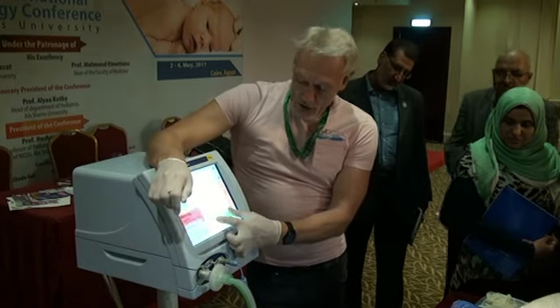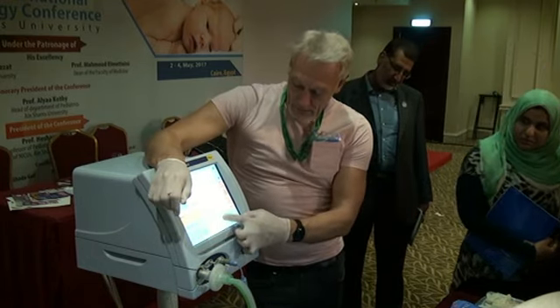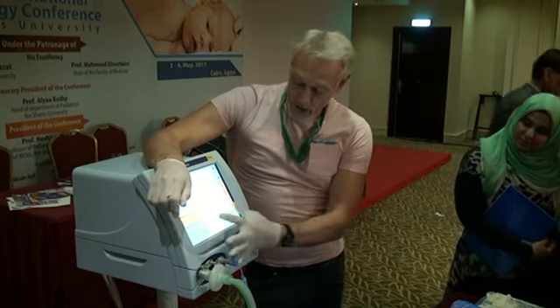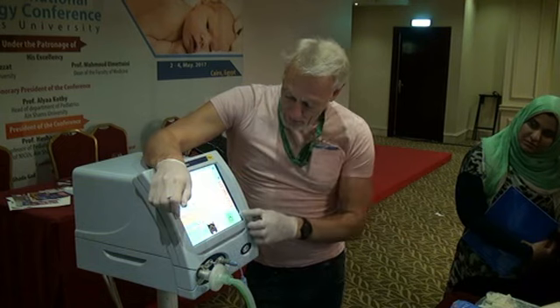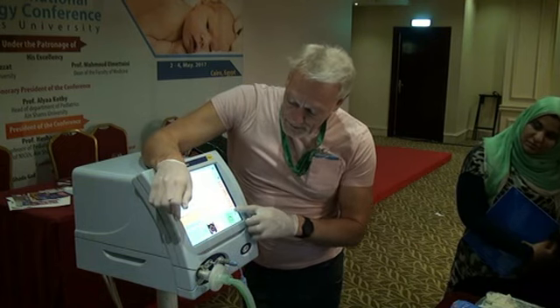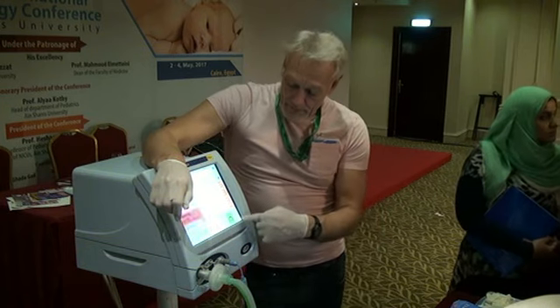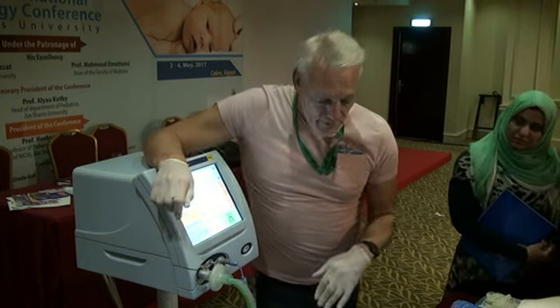So now look at the effort, because I've got a very low PEEP, to try and get to open. I want that to be nice and thin. Well, of course, if I had the baby set up correctly in the first place, I would be doing better, and this will gradually adapt.